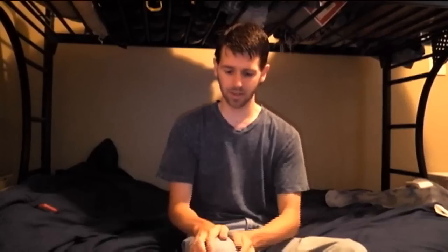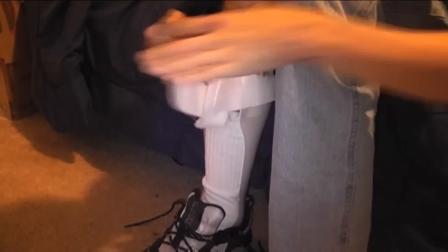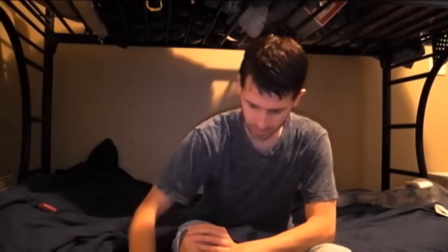And then you just take your leg, cross it over your other leg, then take your leg brace and put your shoe on. You can take that Velcro strap and tighten it up, then tie your shoe and it'll keep your foot and your leg in place.